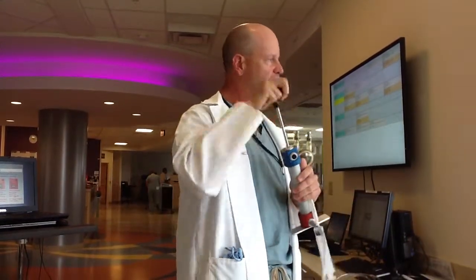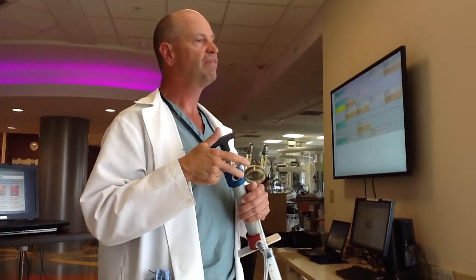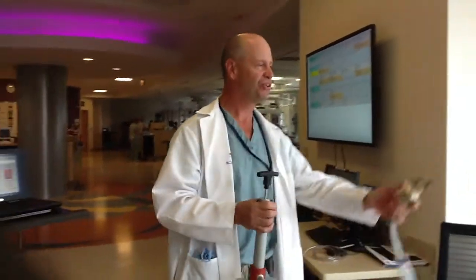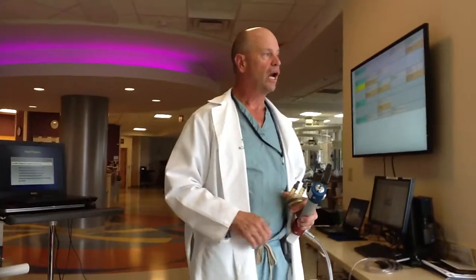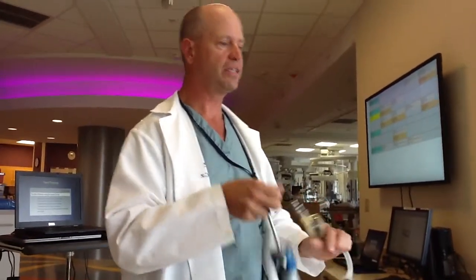Look at the diaphragm — are you cycling it with your hand pump? If you're not, we've got big issues. You'll be able to go like this for a while, but your arms are not going to last very long. That's why they put these little side handles on it — you can do that all night long. You can even put your toe on it and cycle the pump like this; it's much easier. I'd get a chair, sit down, and you can do that all day long.